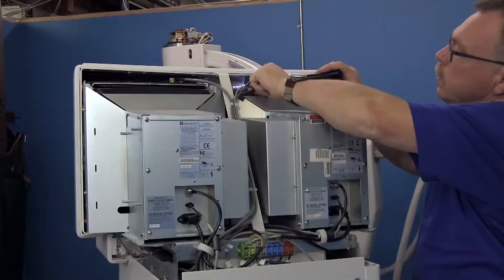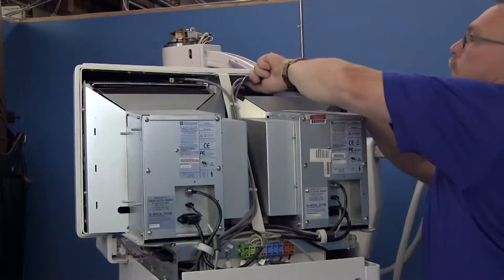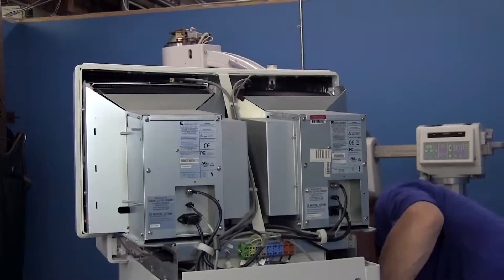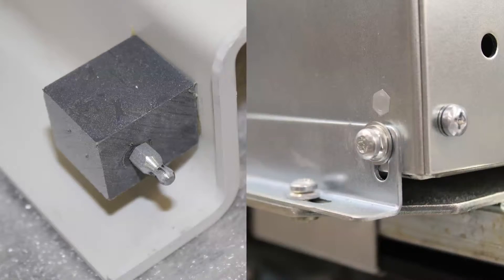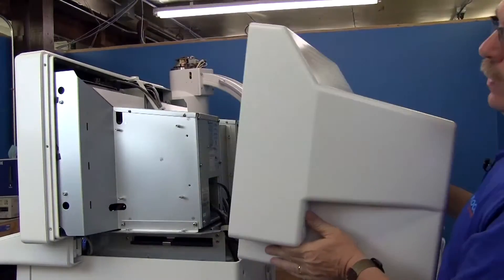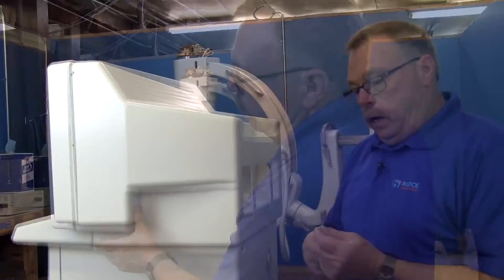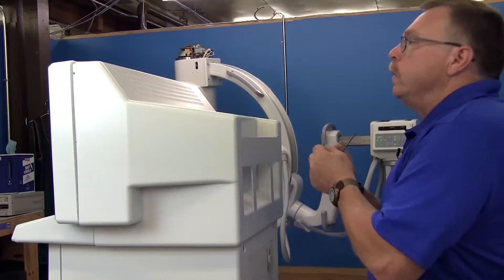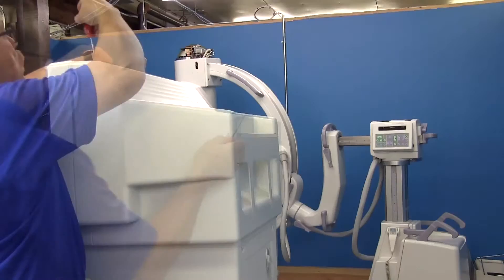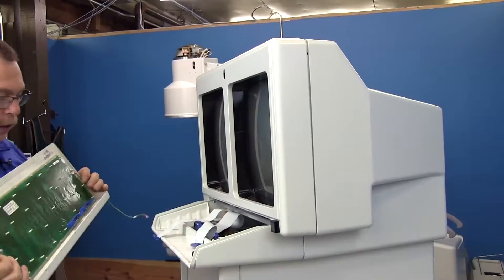Make sure that you re-plug your illumination sensor. Then put the hood back on — these little connectors line up on both sides. The two screws at the top are going to be your longer screws so they will reach.